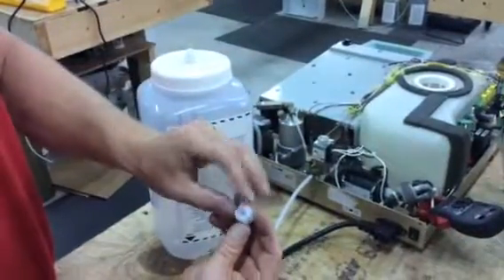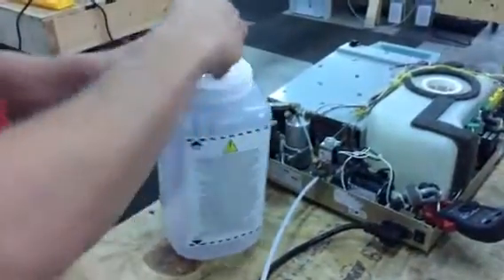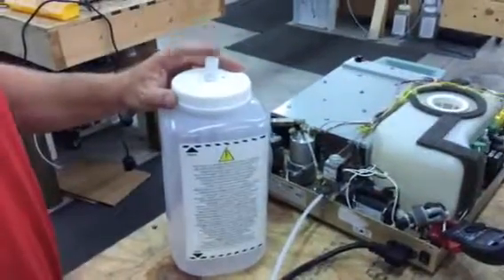It will come with a nut, a ferrule, and then there's a little locker spring in there. That will come screwed to the top of the bottle like this.